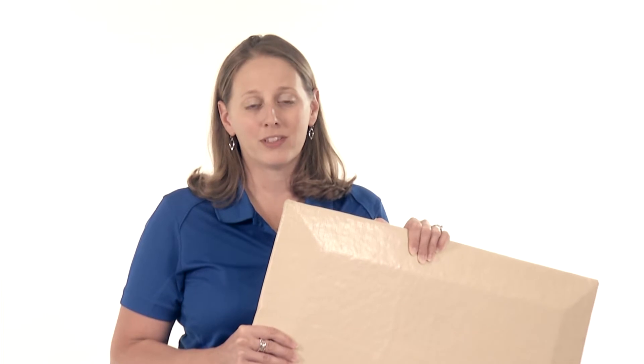The Panacea Protector Bedside Mat from Direct Supply provides a great value and helps you promote resident safety. Hi, I'm Carrie Harbaugh, product consultant with Direct Supply, and I'm excited to introduce to you today one of our favorite bedside accessories.